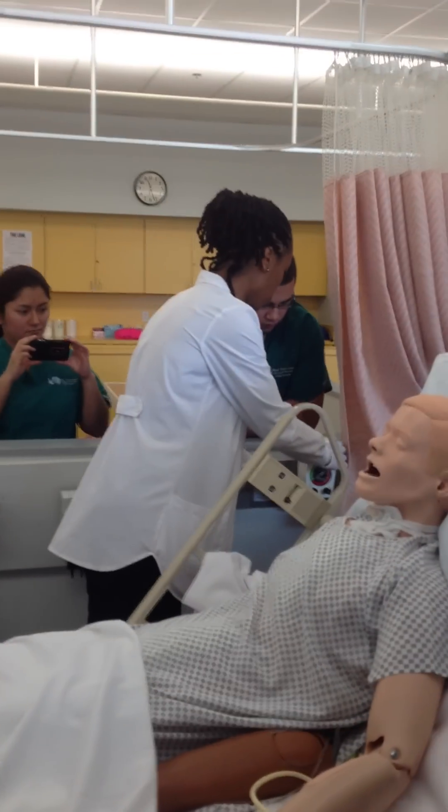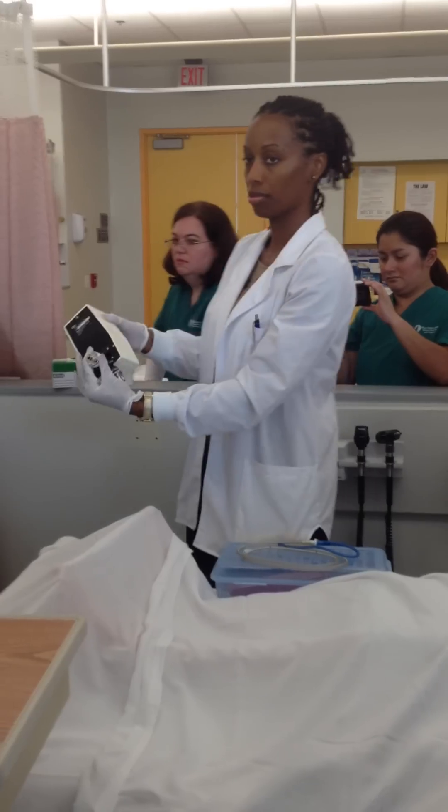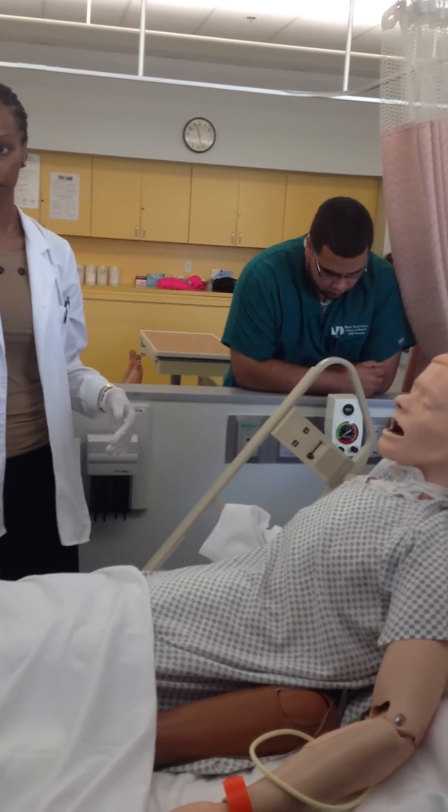To remove it from the wall, you just turn this light. You just line the notches up and push it in quick. That's it.